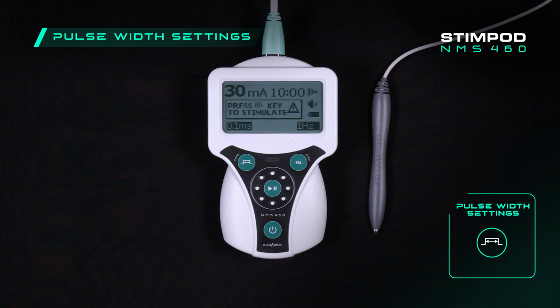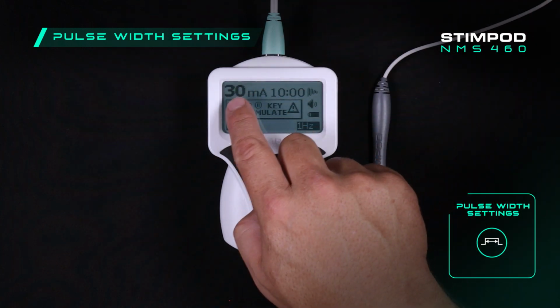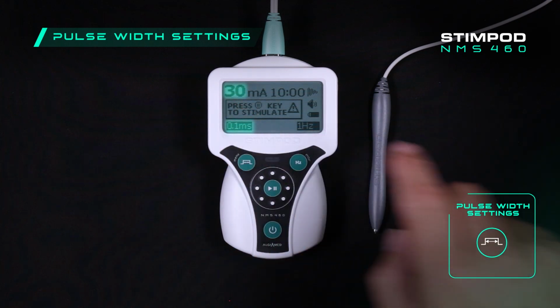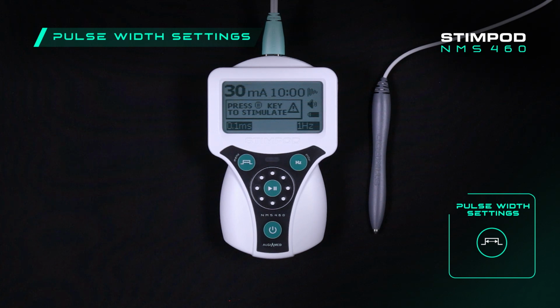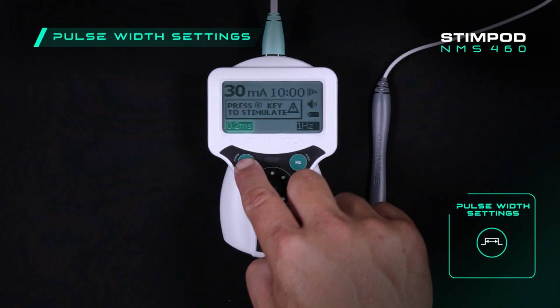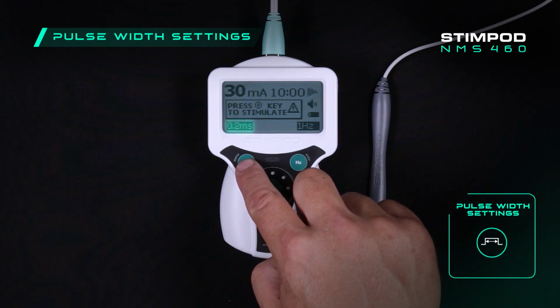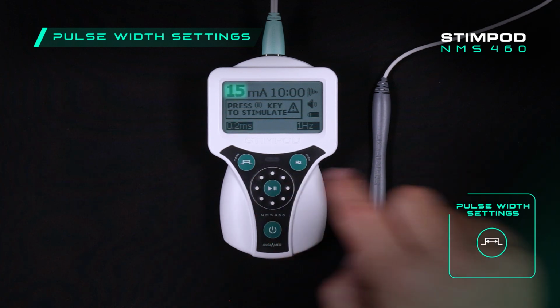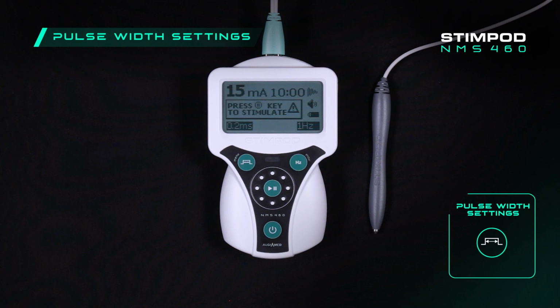Well, if you're treating a patient at the maximum current setting of 30 milliamps with a 0.1 millisecond pulse width, and you find that this stimulation intensity is not enough, you can change the pulse width to 0.2 milliseconds and decrease the current setting to 15 milliamps. This will deliver the same charge and the patient will experience about the same sensation.